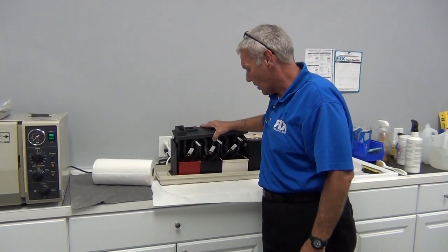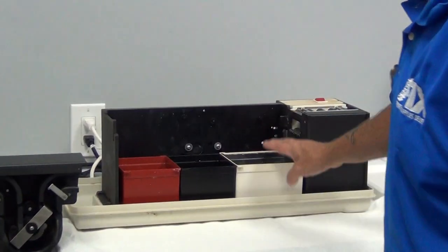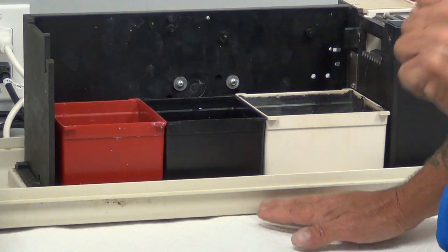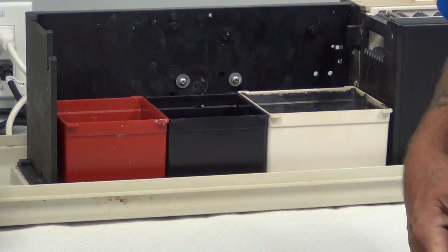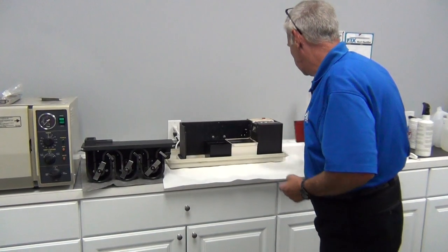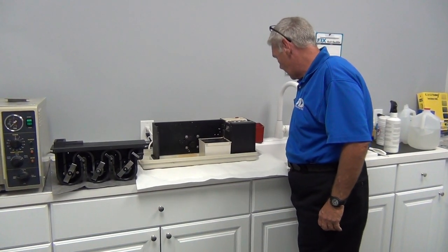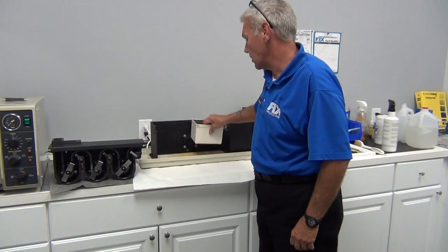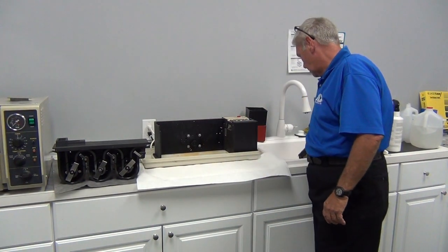We're going to take our main transport out, allow it to drip a little bit, and set it aside. This is going to expose our solution tubs. Listen carefully: check the codes in your area regarding disposal of fixer and developer and radiographic chemicals. Some jurisdictions like Georgia, you can simply pour them down the sink. Some localities require you to use a reclamation service — if so, please follow the protocol and dispose of the solutions correctly. We also have the water rinse tub left over, which we're going to dump as well — basically it's just water.